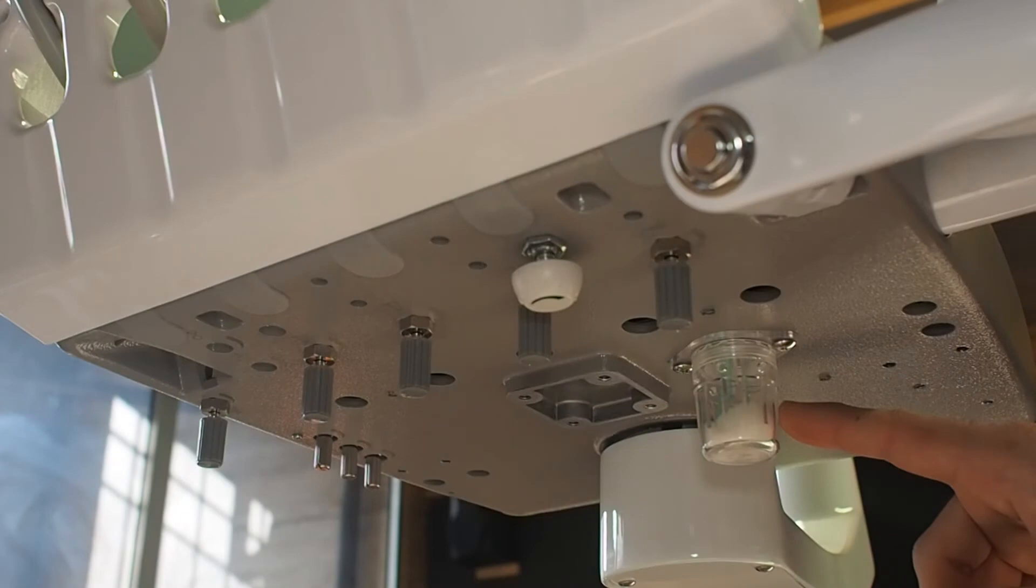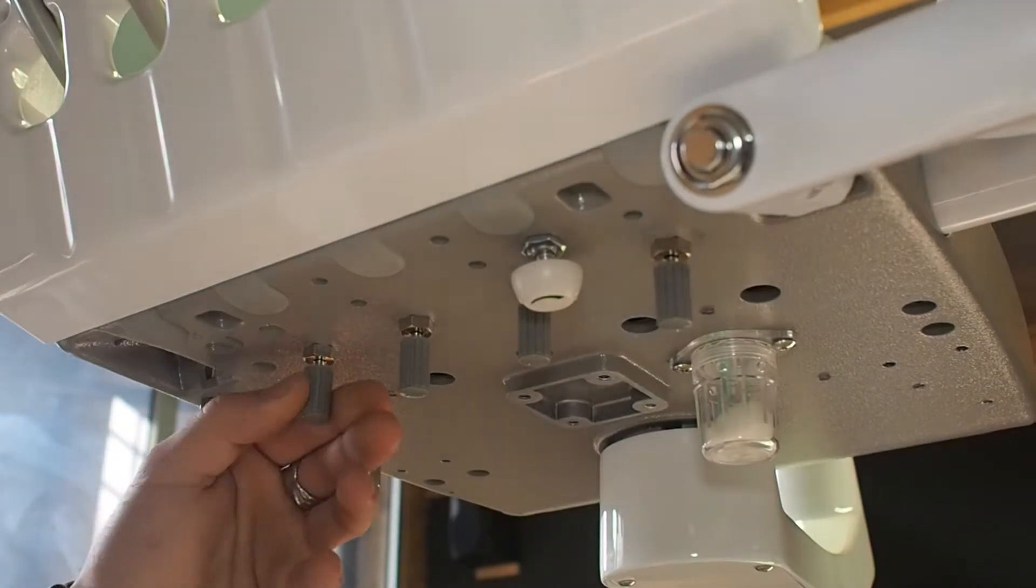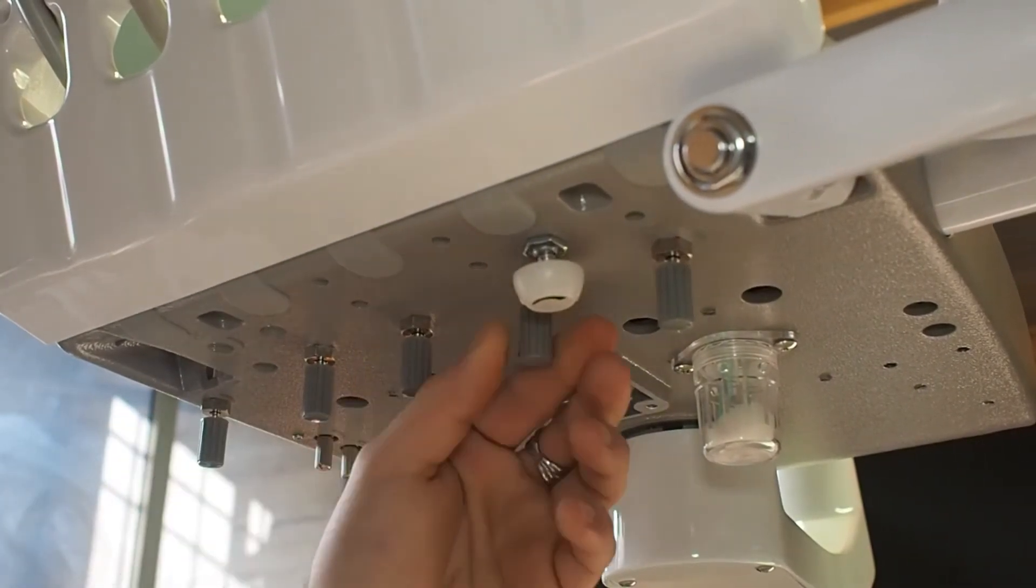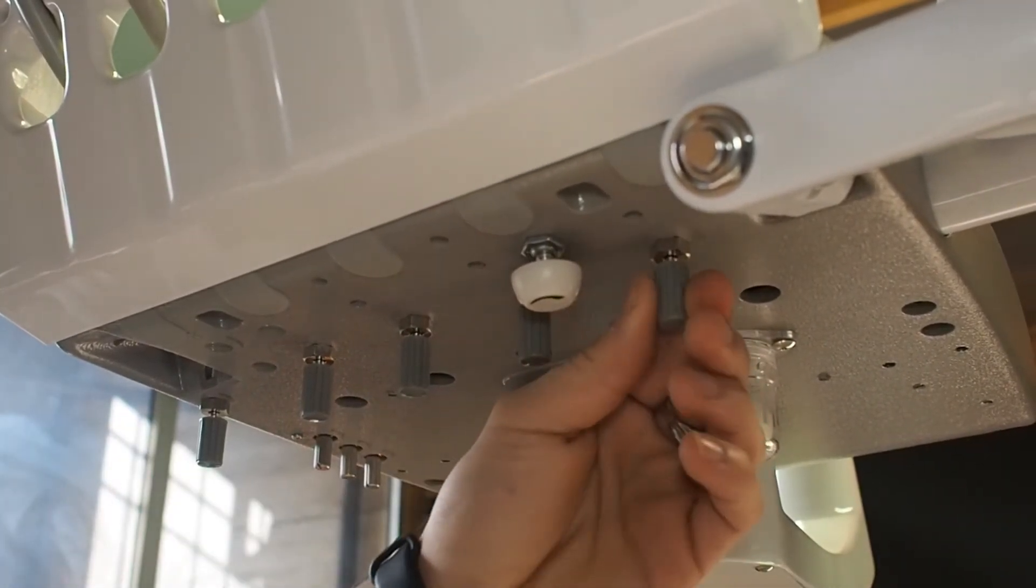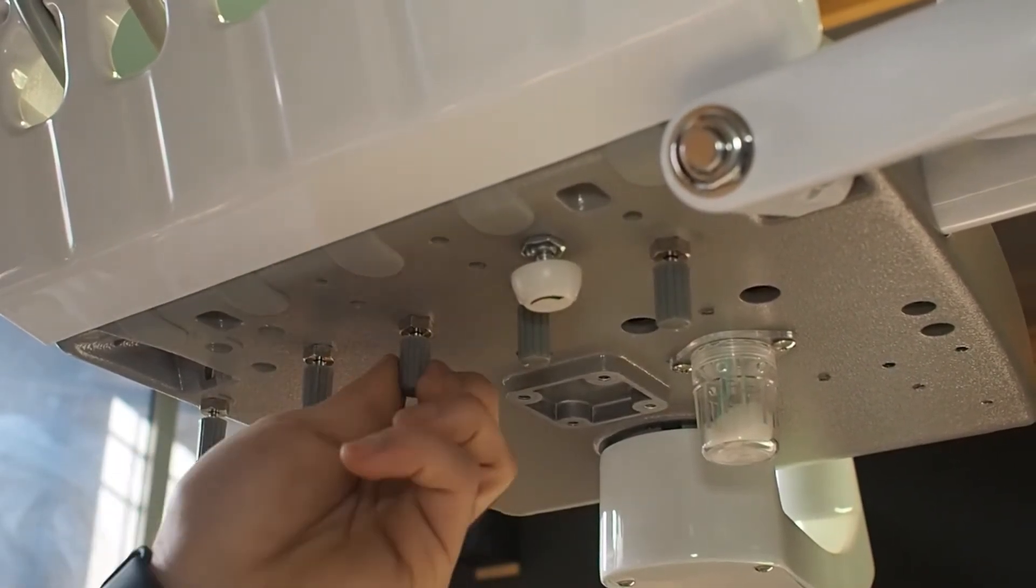How to adjust the water pressure. If the water pressure is too high, you can find some water here. In any case, to adjust the water pressure, you must close the main water valve. After that, open all valves turning each knob by one turn.